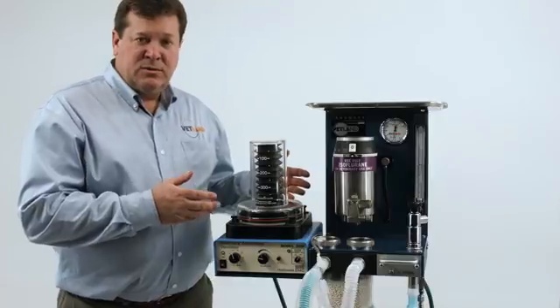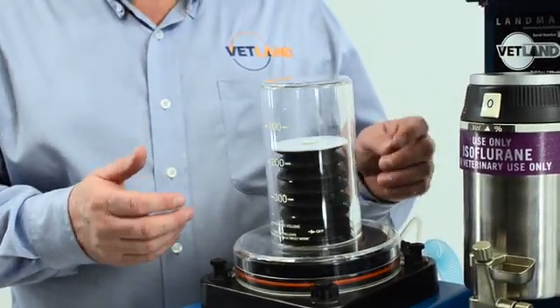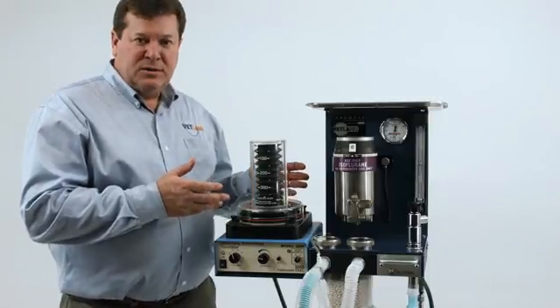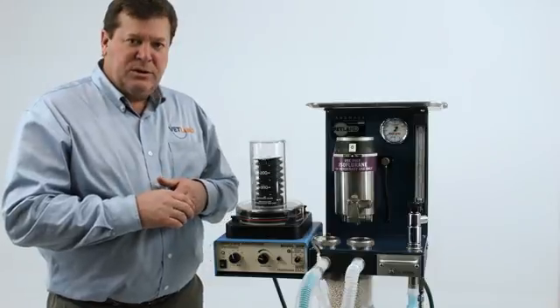The ventilator is available with a zero to three hundred bellows, zero to fifteen hundred milliliter bellows, or a zero to three thousand milliliter bellows. So you can match the bellow size to the patients that you're going to be treating.